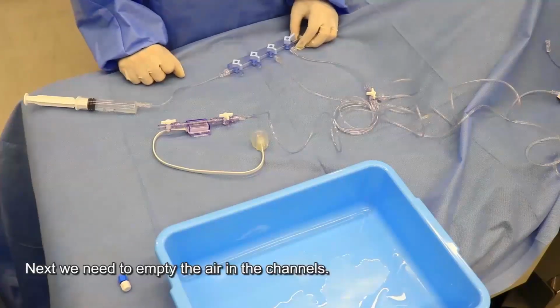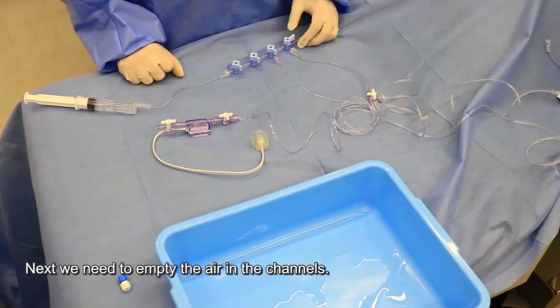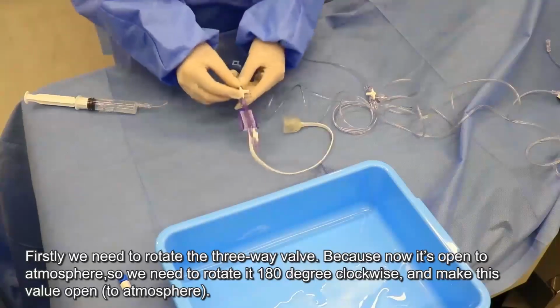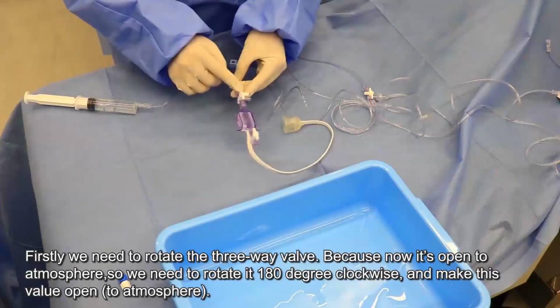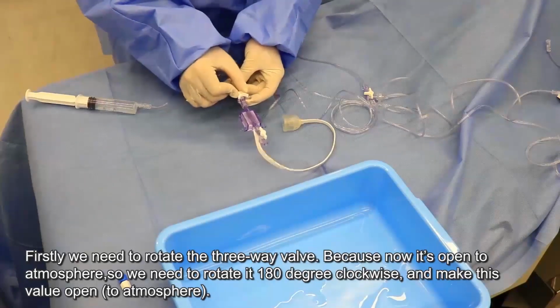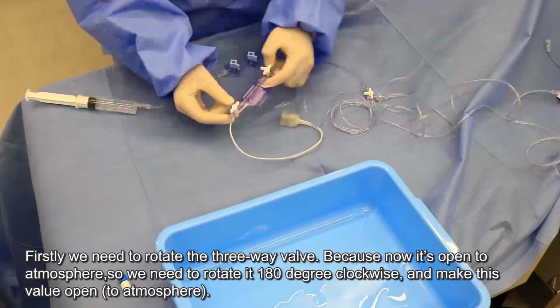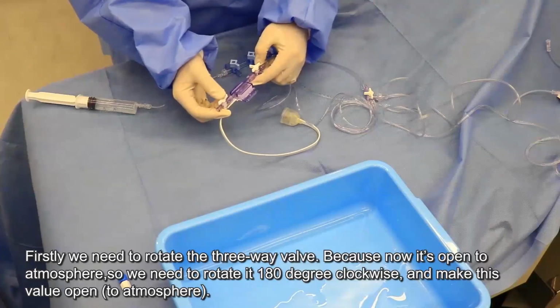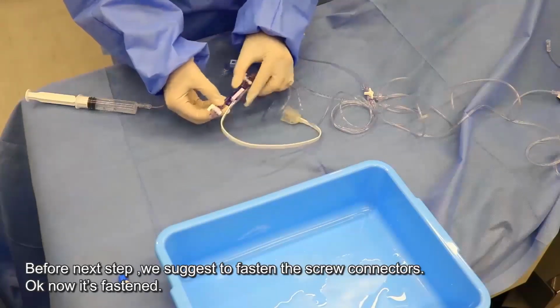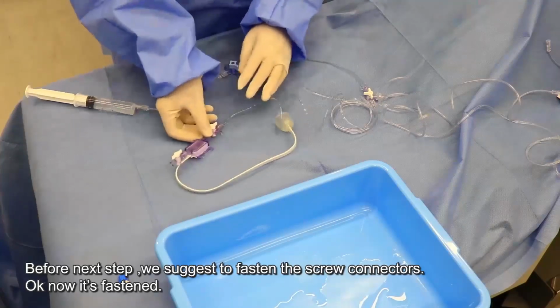Okay, next we need to empty the air in the channels. First, we need to adjust the 3-way valve, because now it's open to the atmosphere. So we need to rotate it 180 degrees clockwise and make this valve open to the atmosphere. Before the next step, we suggest to fasten here. Okay, it's fastened.